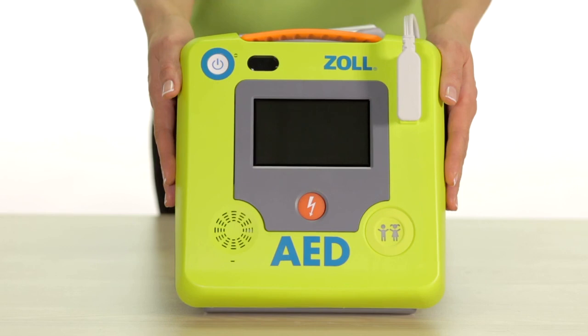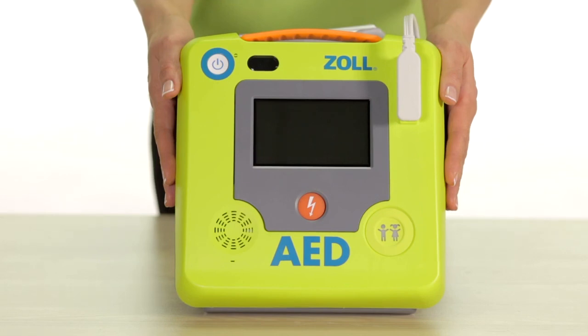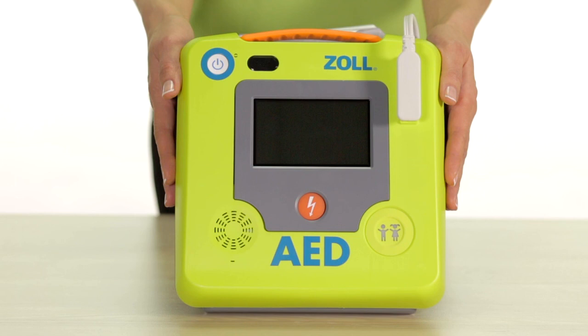This concludes the basic touchscreen configuration options segment of this video. For advanced configuration options, continue on to the next segment of this video. Thank you.